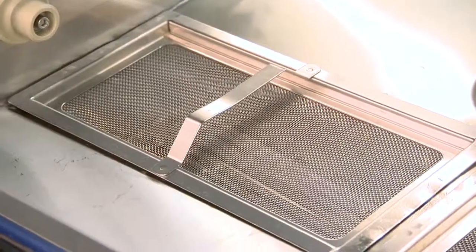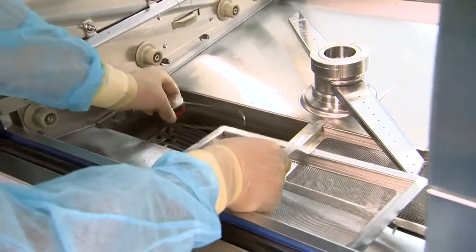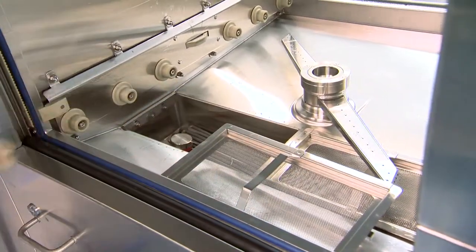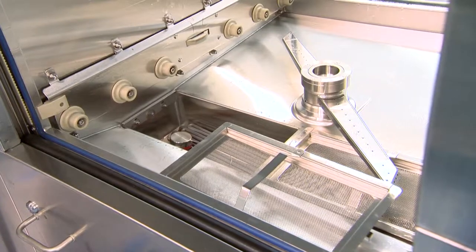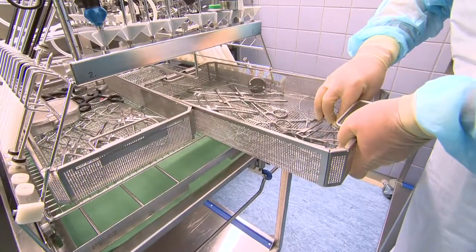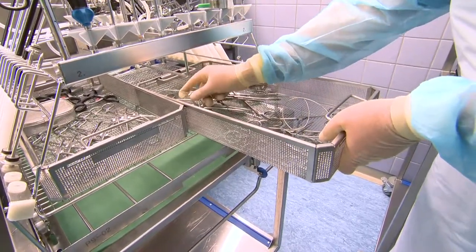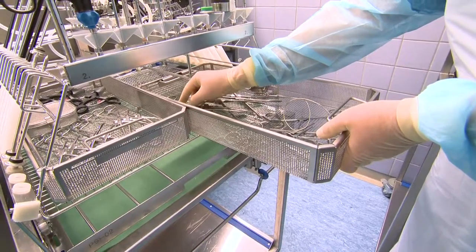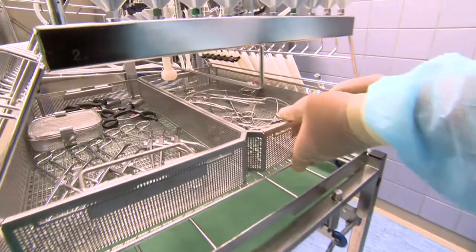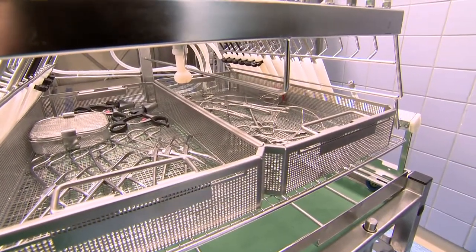In each case a temperature sensor is placed adjacent to the temperature sensor of the automatic control system and at the reference sensor of the register device of the washing disinfector. The other sensors are placed between the load or instruments respectively and at the risk locations.